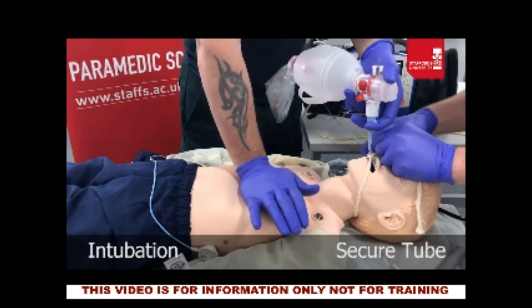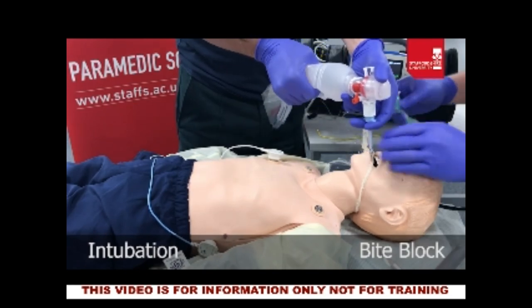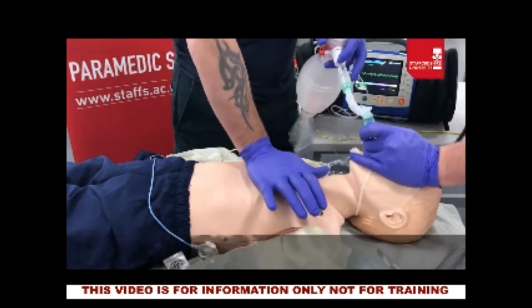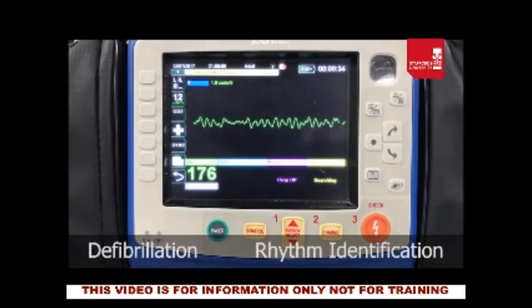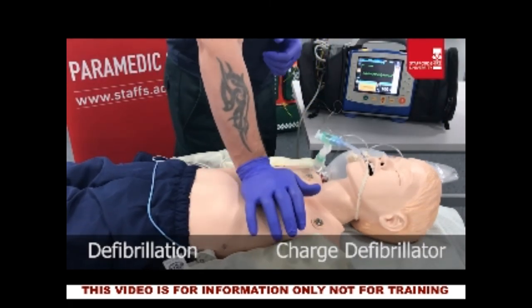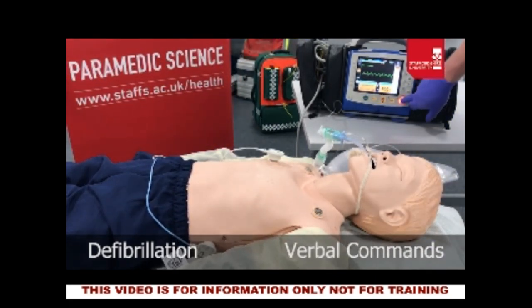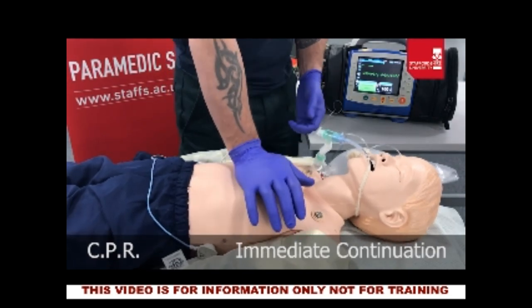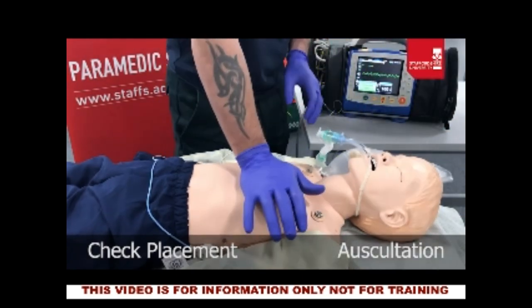We will go through this again in the practical session for a closer look at the technique. Having established a secure airway, two minutes has elapsed in our cardiac arrest scenario so we are due another rhythm check. We identify the rhythm — still ventricular fibrillation, a shockable rhythm — so we charge the monitor again at 100 joules and go through safety checks to perform defibrillation. Because the patient is now intubated, we need to check tube placement after defibrillation by monitoring ETCO2 and waveform capnography, and by auscultating bilaterally both sides of the chest and over the epigastric region when ventilating.